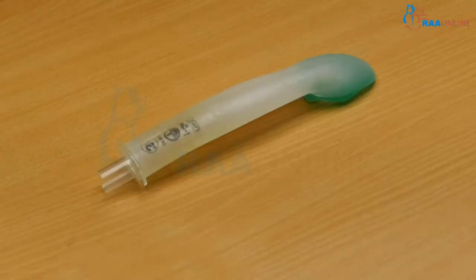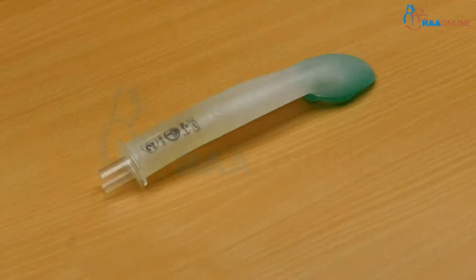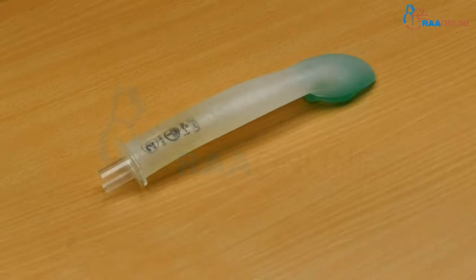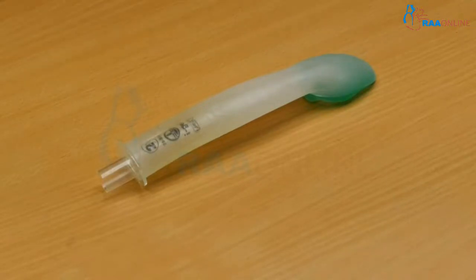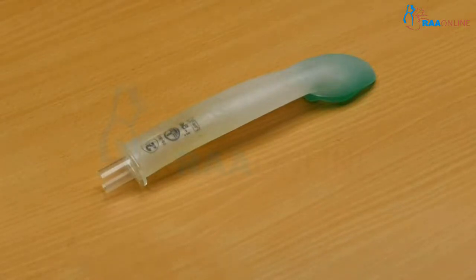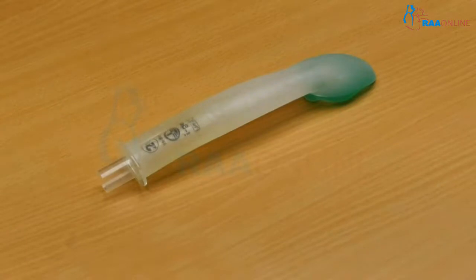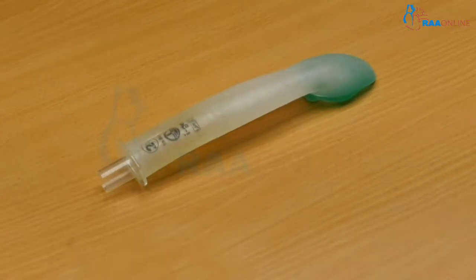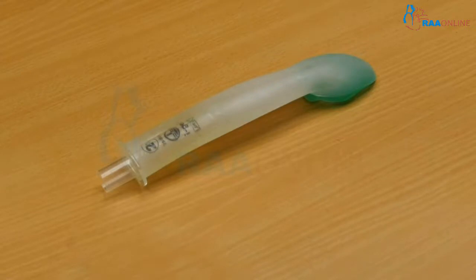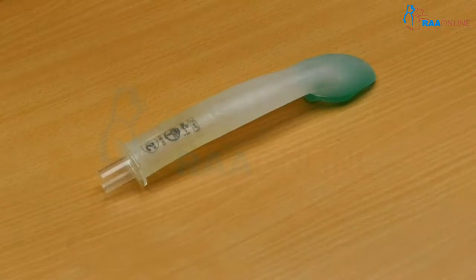As you all know, the supraglottic airway device was first invented by Archie Brain. Initially, it was used for paramedical persons until expertise in airway management arrived. Later on, it has been used in all parts of anesthesia. Especially, it fills the gap between mask ventilation and intubation. Nowadays, we are using it in all aspects during general anesthesia for airway management, even not only as a rescue device — it has been used instead of an endotracheal tube. As the safety profile keeps on increasing with various inventions, the supraglottic device is definitely a very important milestone in airway management in anesthesia.